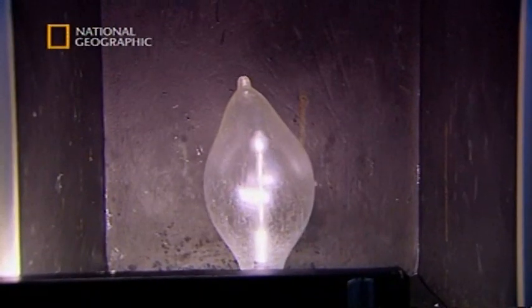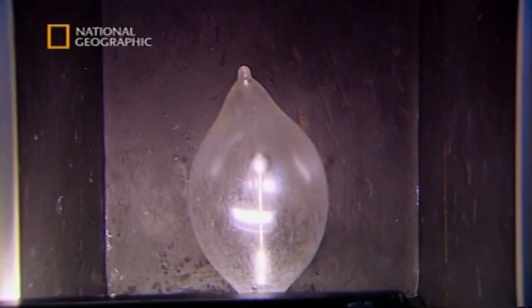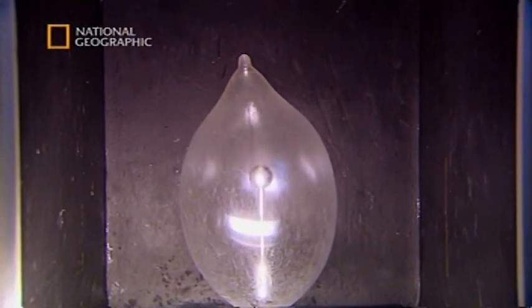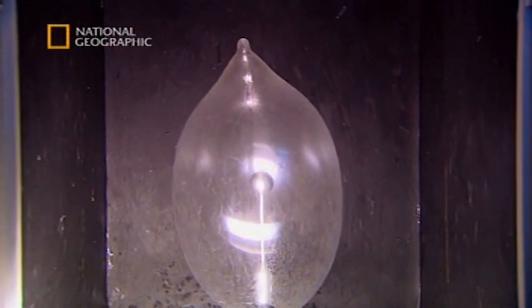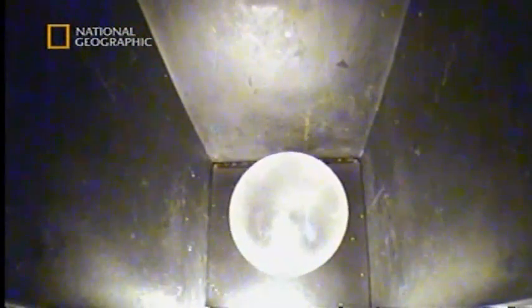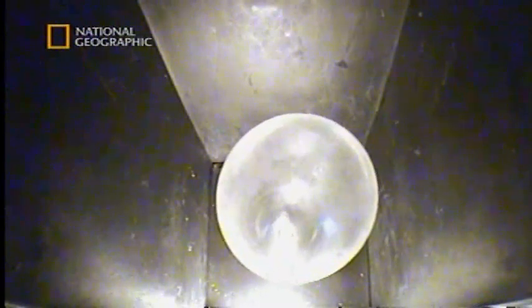Air under pressure is forced into each condom. Condoms must take a minimum of 18 liters of air, the equivalent of nine big bottles of fizzy drink. The rubber is just 0.06 of a millimeter thin, which enables condoms to provide a balance of pleasure and protection.